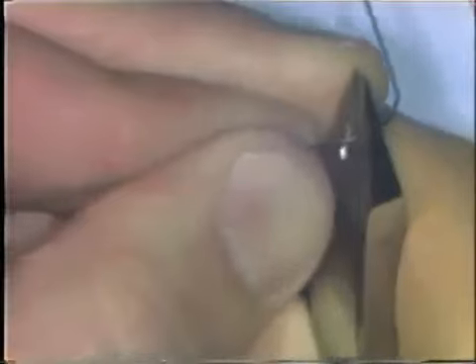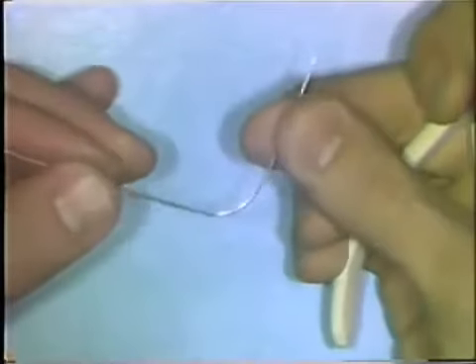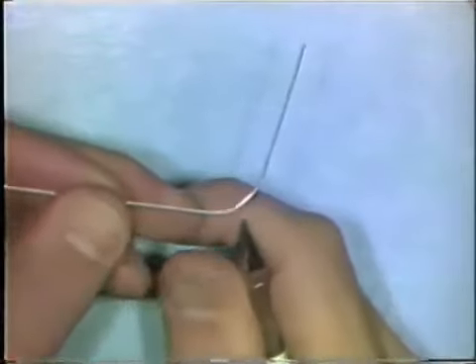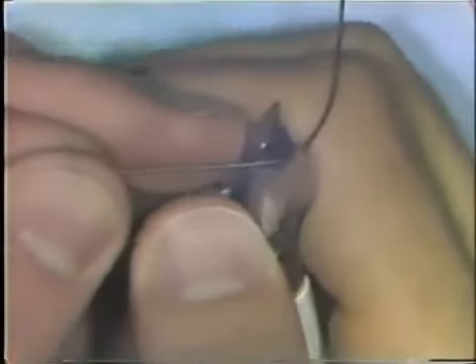You slide the wire along through the beaks and apply pressure. Your fingers can be a little bit away from the plier beaks for formation of a curve. You'd like the curve to be smooth and continuous. To adjust a curve to make it fit the arc that you'd like, you sometimes have to flatten out areas that are overly curved. You do that by placing the curve in the flat base portion of the pliers and squeezing it, which will open up the curve a bit.